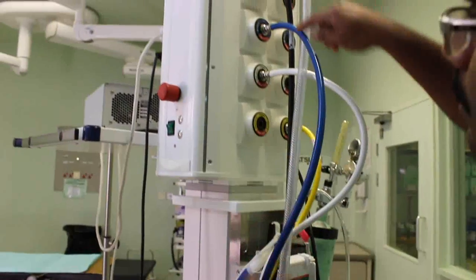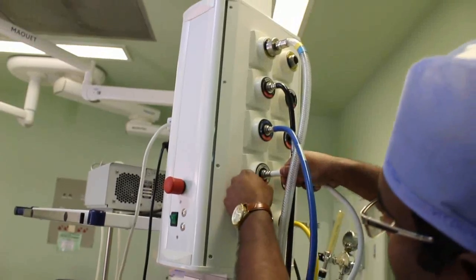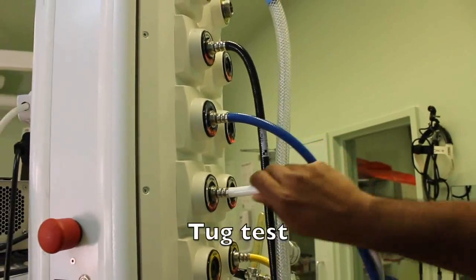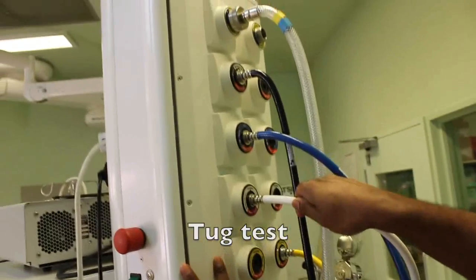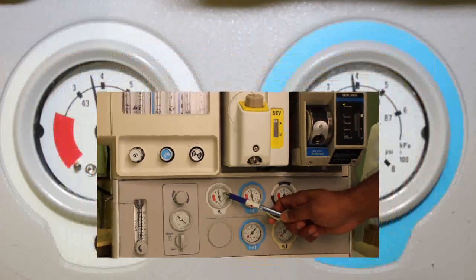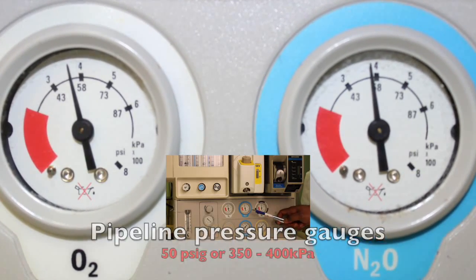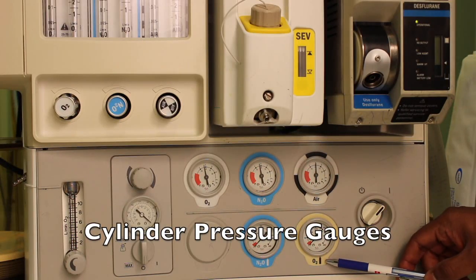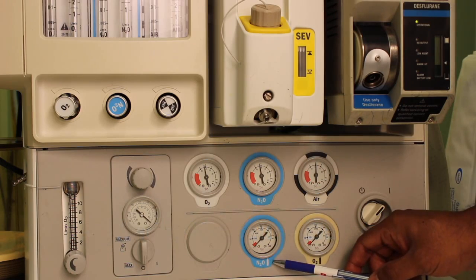Check the high pressure system. Check with a tug test that each pipeline is correctly seated and in the appropriate wall outlet designated for the specific gas. See that pipeline pressure gauges read 50 psig of pressure. Right now, cylinder pressure gauges should read zero.